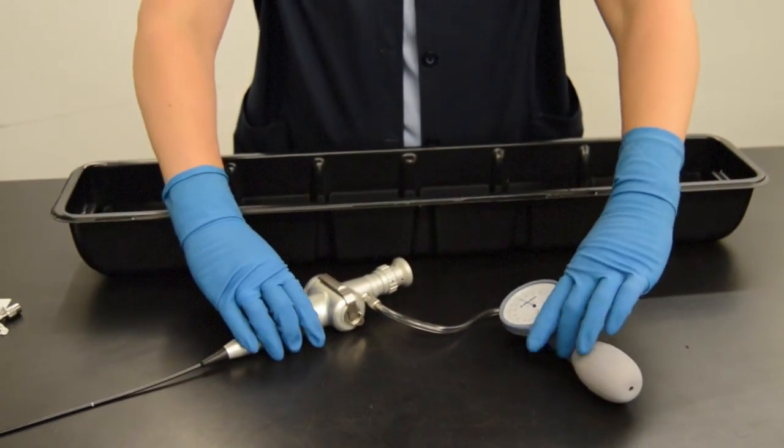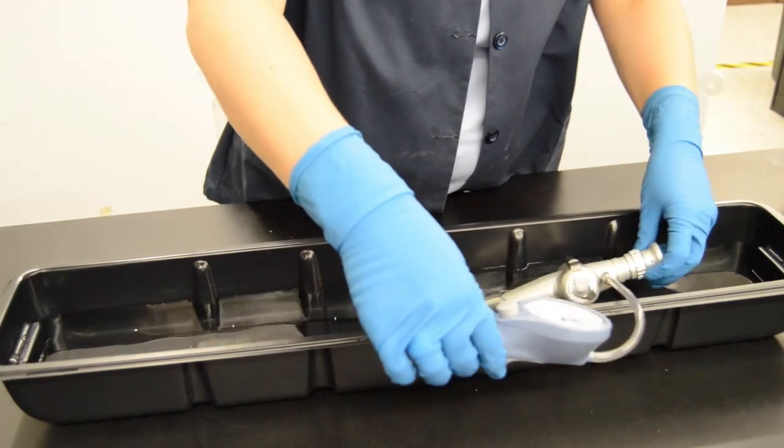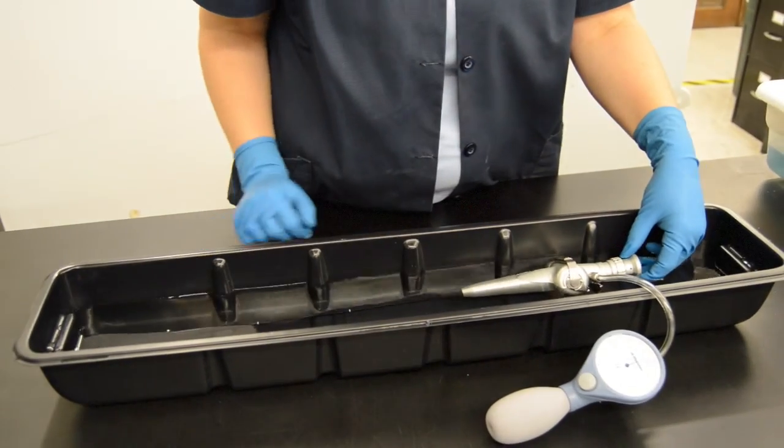If the needle stays in place, immerse the entire endoscope in water. Observe the endoscope for 30 seconds. Articulate the distal bending section up and down during this period.